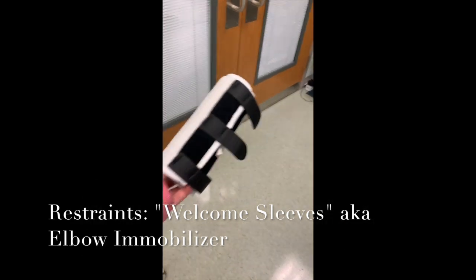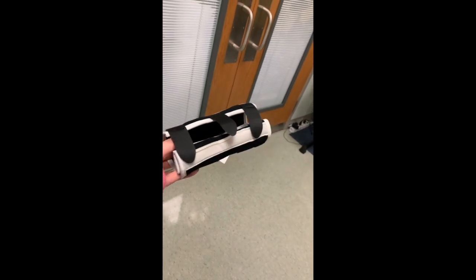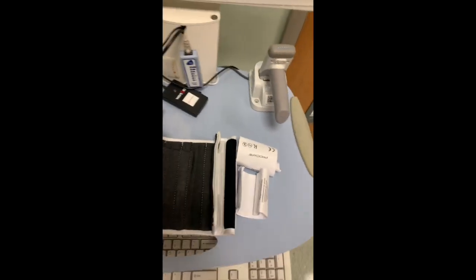So on the topic of restraints, I want to show you guys something we call welcome sleeves. The technical term for them is elbow immobilizers, and I'm going to show you how they work. This is a restraint that we use mostly to help keep kiddos from pulling out their IVs or NG tubes or messing with anything else that they shouldn't be messing with. It's kind of hard to do with one hand. But if you can see here with this one, it opens up really long like that.